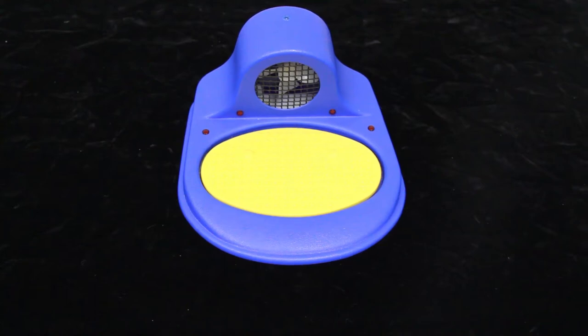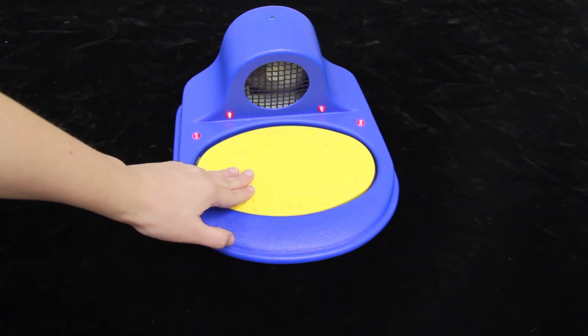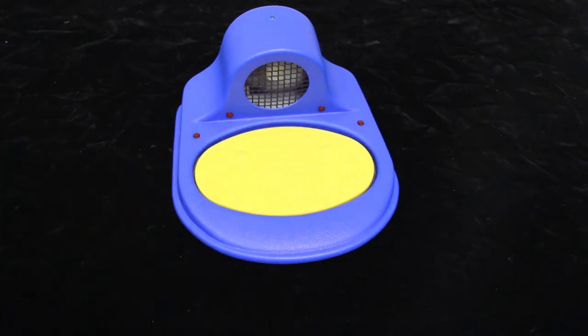This is the Switch Musical Fan with Lights by Enabling Devices. It's an assistive technology designed to help those with disabilities learn about cause and effect.